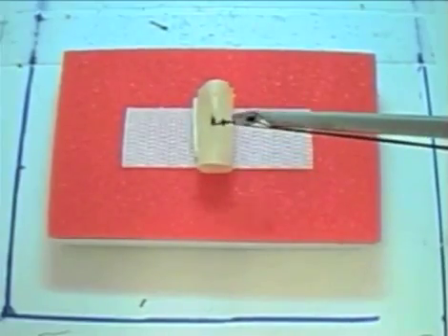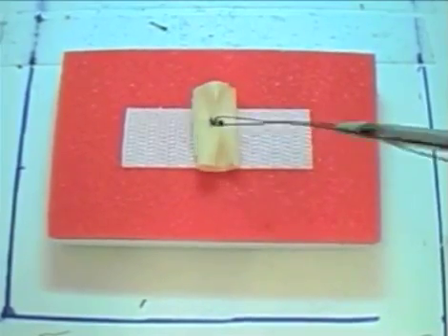One hand is used to pull up on both ends of the stitch while the other is used to push the knot down.